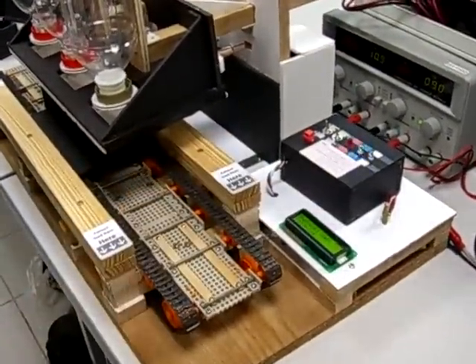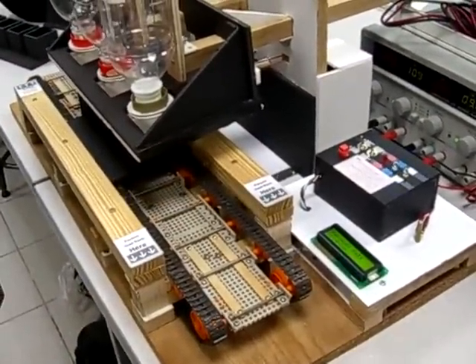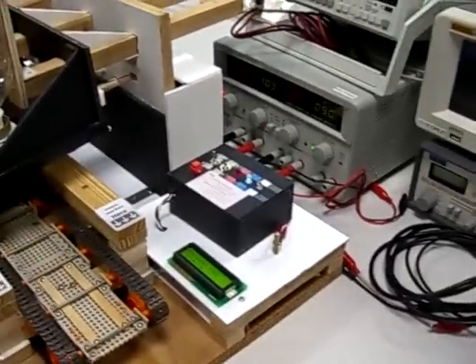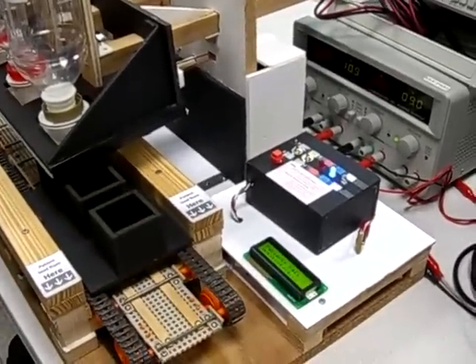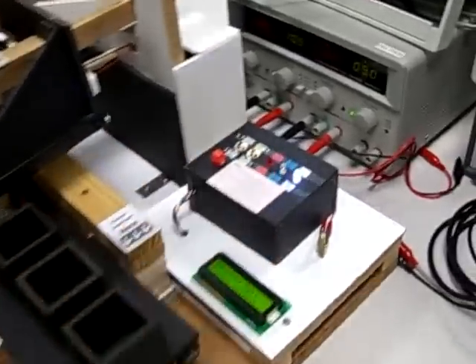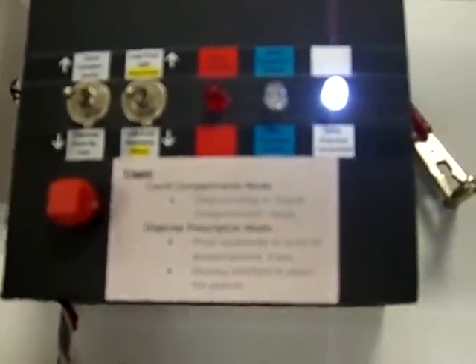The red color is blinking right now because it's counting the number of compartments. The blue color light is blinking because it's waiting for the pills to be dispensed. Finally, when it's been dispensed, the white color light will go on for a few seconds until enough time has elapsed, and then it goes to standby mode and turns off.